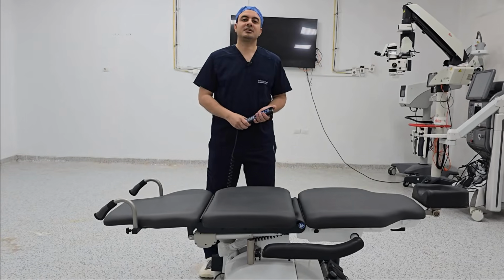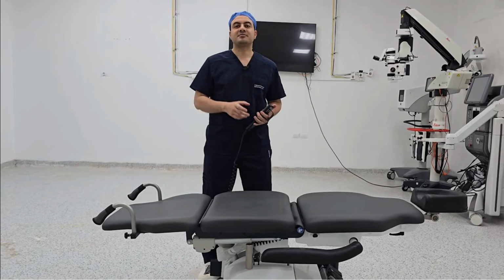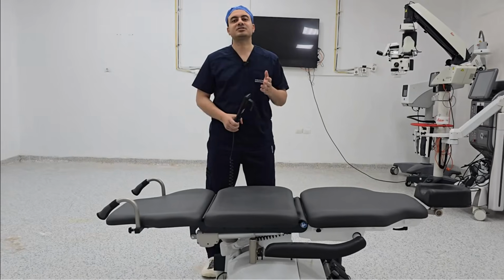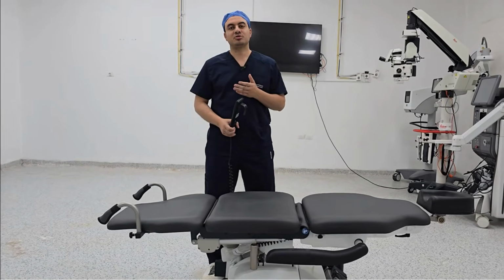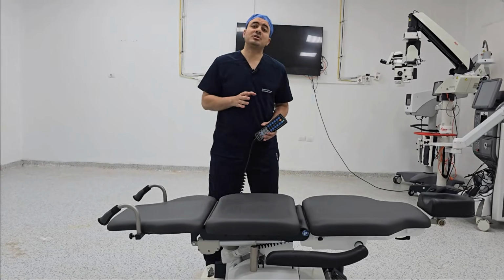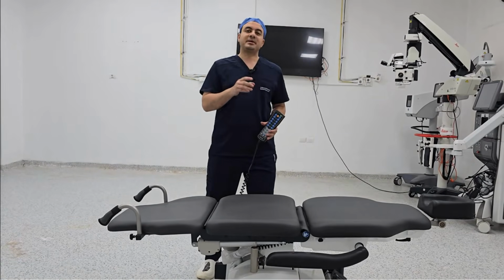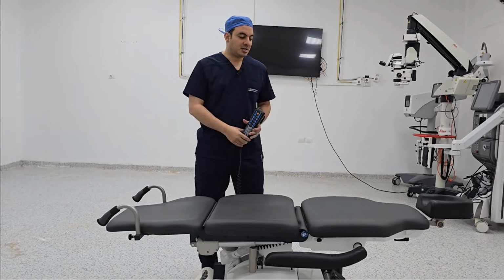How are you, everyone? This is the first lecture in ophthalmic surgery tips and tricks. We'll start this lecture talking about the surgical ophthalmic table. The surgical ophthalmic table, as with patient comfort, will reflect the surgeon's comfort. So, today we will start talking about the ideal ophthalmic surgery.